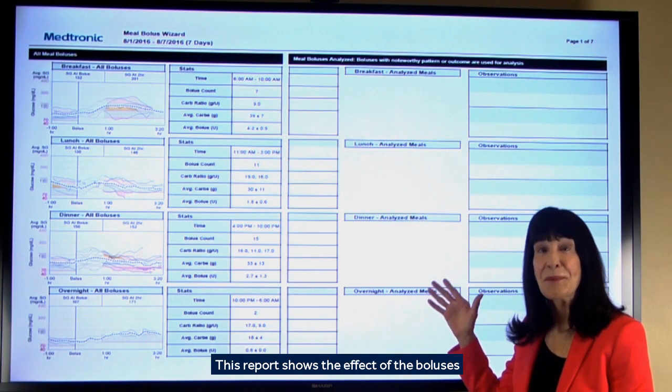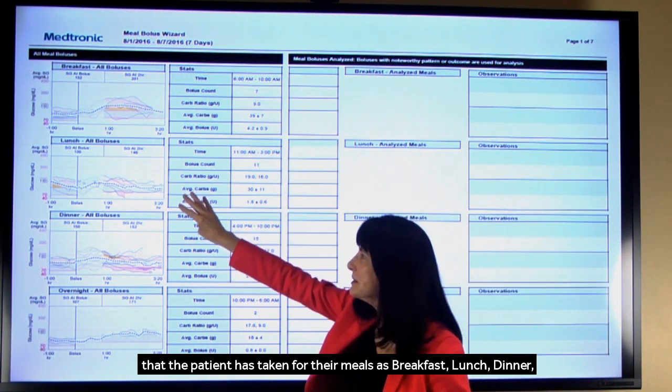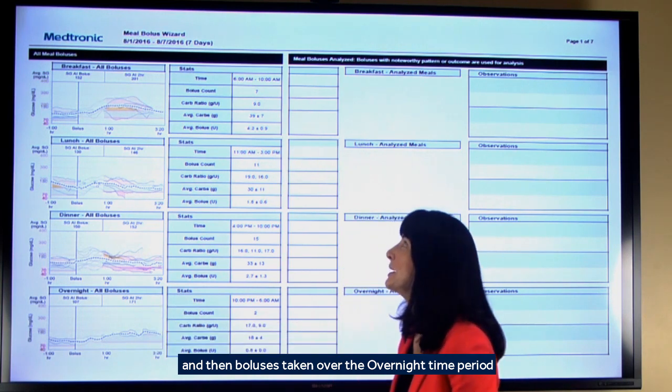This report shows the effect of the boluses that the patient has taken for their meals as breakfast, lunch, dinner, and then boluses taken over the overnight time period.